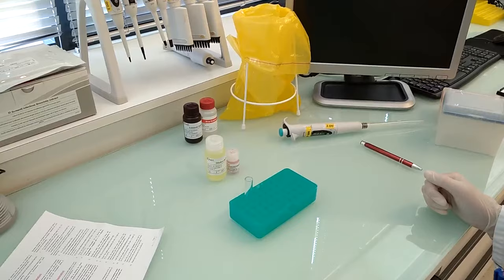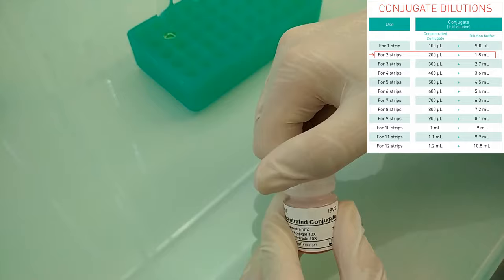Conjugate preparation: Prepare the conjugate 1X by diluting the concentrated conjugate 10X to 1 to 10 in dilution buffer 3.